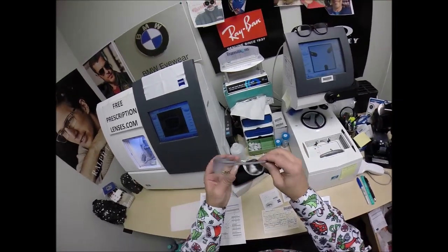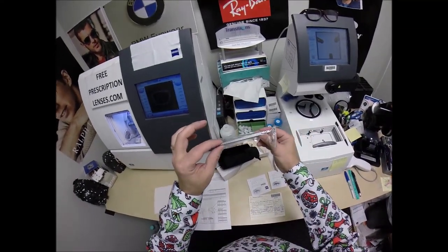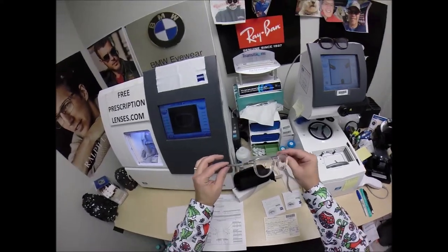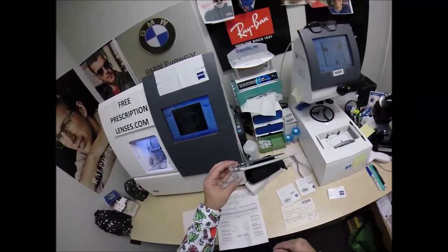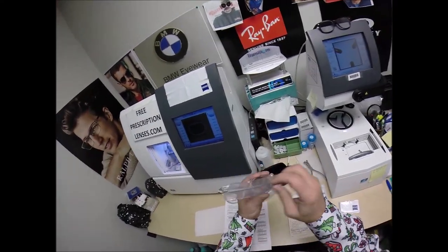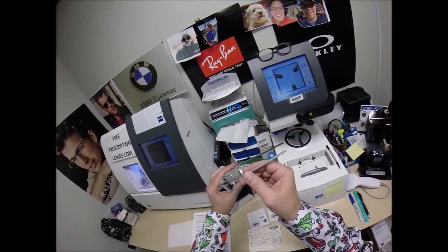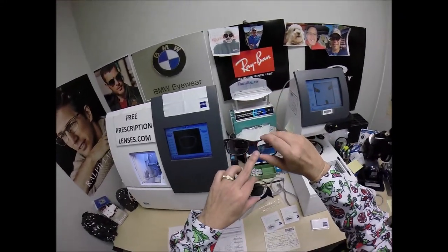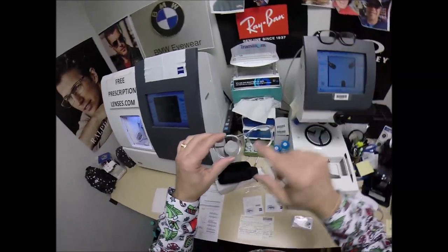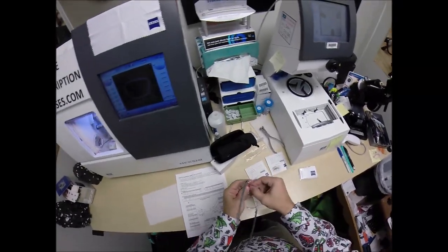I am an authorized dealer for Oakley, but as a small independent optician I'm not legally allowed to post pictures of each individual frame with prices on my website. So if there's a frame you want, just email me — the Contact Me page has a phone number as well. Tell me the model number, size, and color and I'll check price and availability. The frame comes with a plastic sleeve on the left temple to protect the temples from rubbing together during shipping. These are the carbon fiber temples — very strong, very lightweight — with a keyhole bridge versus a traditional saddle bridge. I'm going to pop out the original demo lenses and get started.